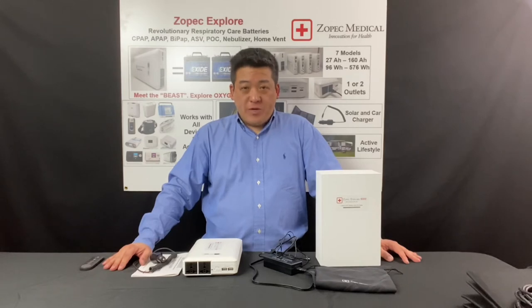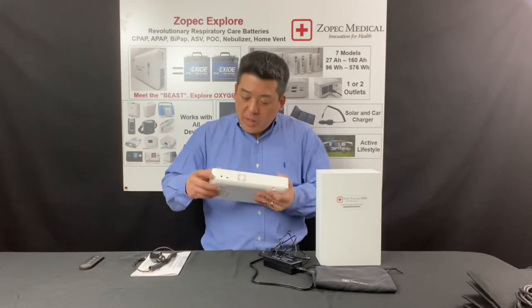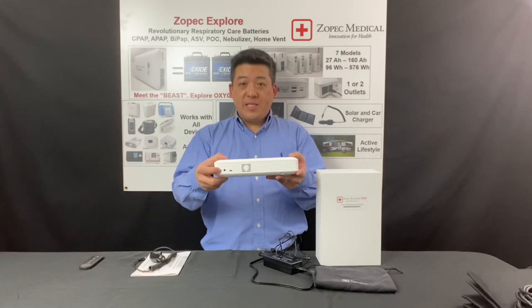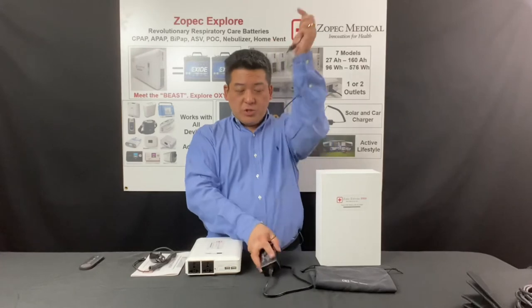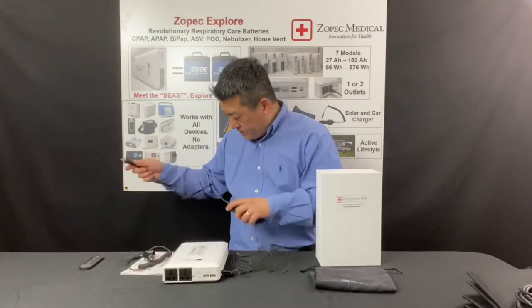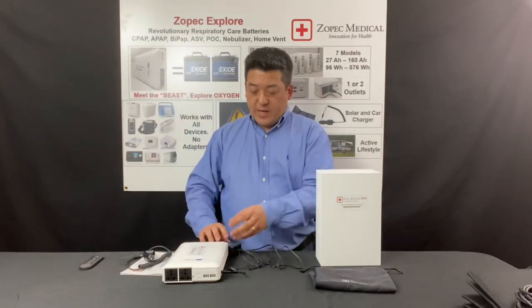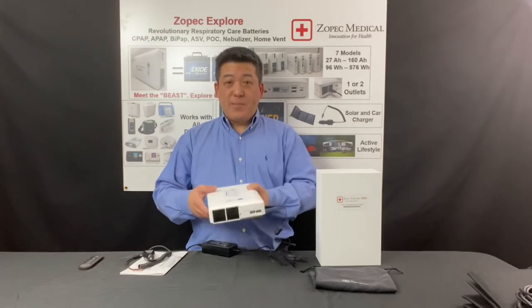The first thing when you receive your battery is to charge it. To charge it, you plug in to the charge port, which is on the side of the battery — it says DC in. You take your wall charger, plug in the side, and then plug into the wall. You will see the capacity counter flashing, and that means it's charging.